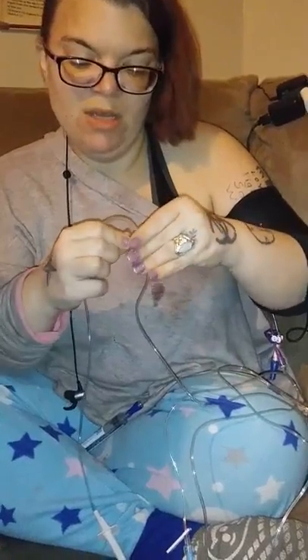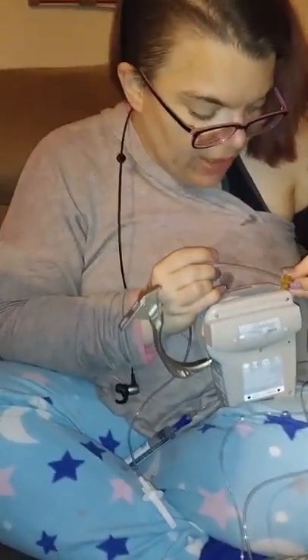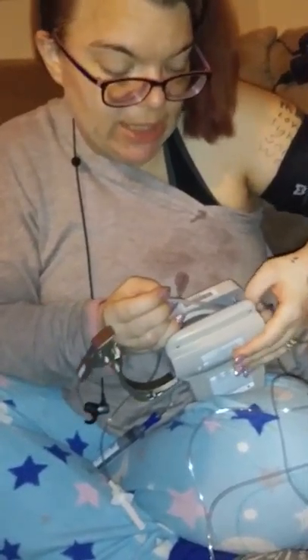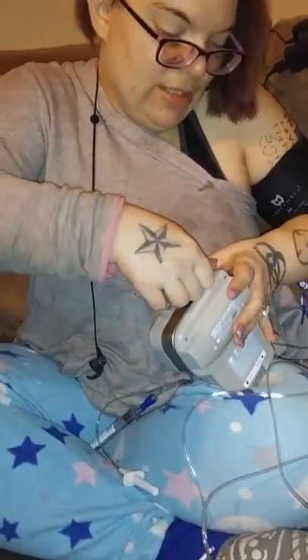Alright, so this is going towards the bag. Here is my yellow end and my blue end. Again, it has another security thing basically to make sure that we know the line is good. This also has a cap here that has to get punctured. So I always have a bit of trouble with this — the actual spiking of the bag is worse. It kind of rests in there with springs in it, so it gets loaded. Then this slides into the little square part where the blue is and I have to bring it forward, above that clip, and then lock it in.